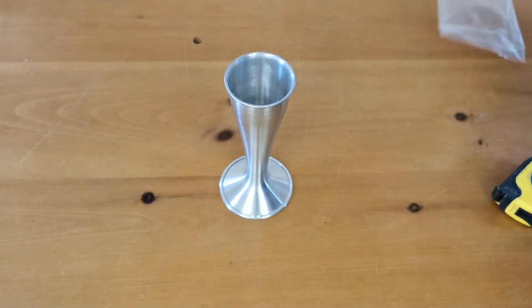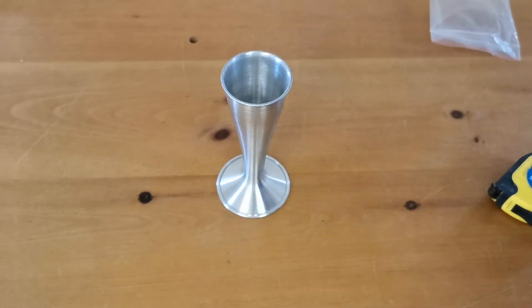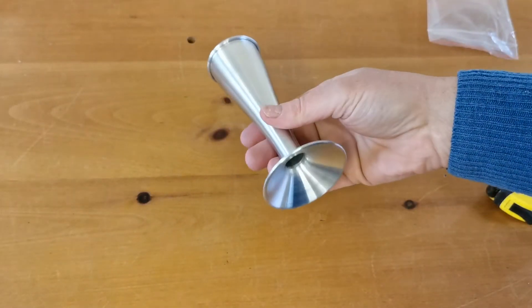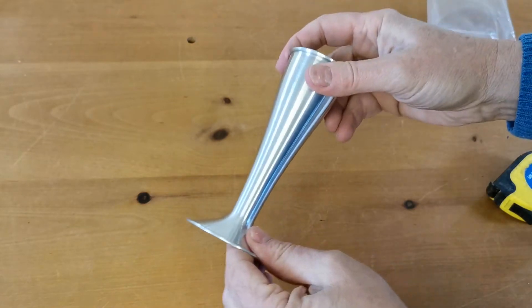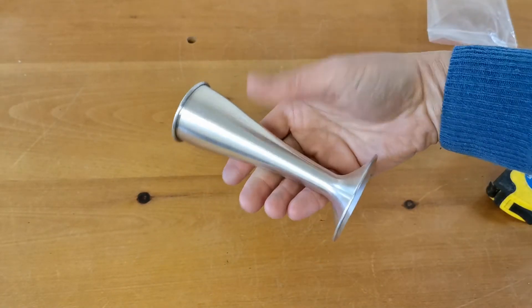This piece is more the classic design that you're probably more used to. It's a light aluminium alloy design — very robust but very light. This actually comes in at around 30 grams total weight.